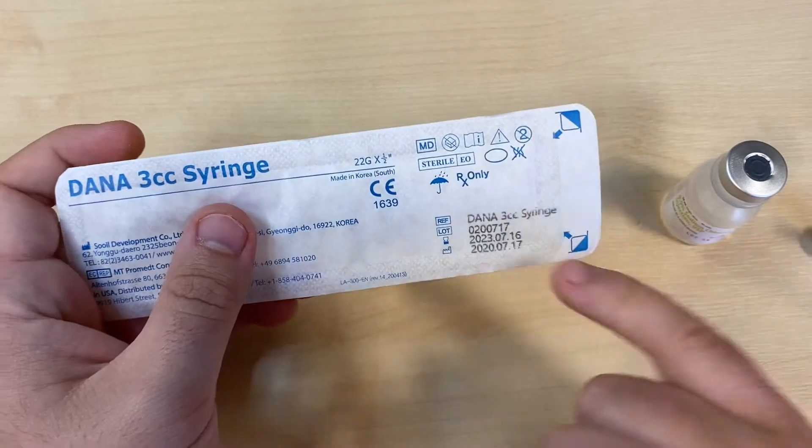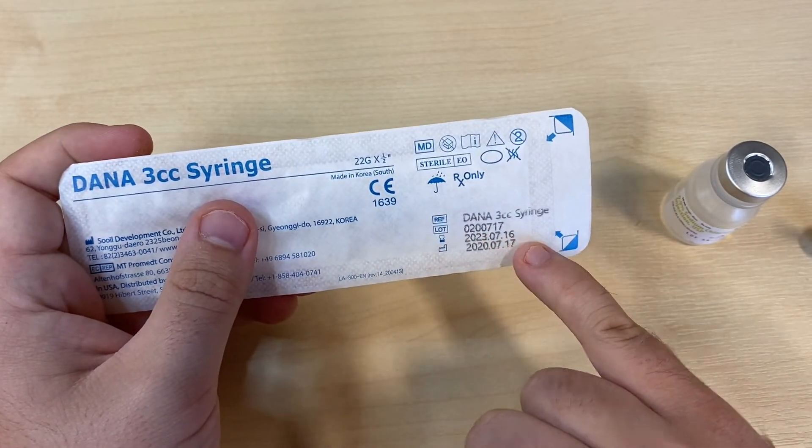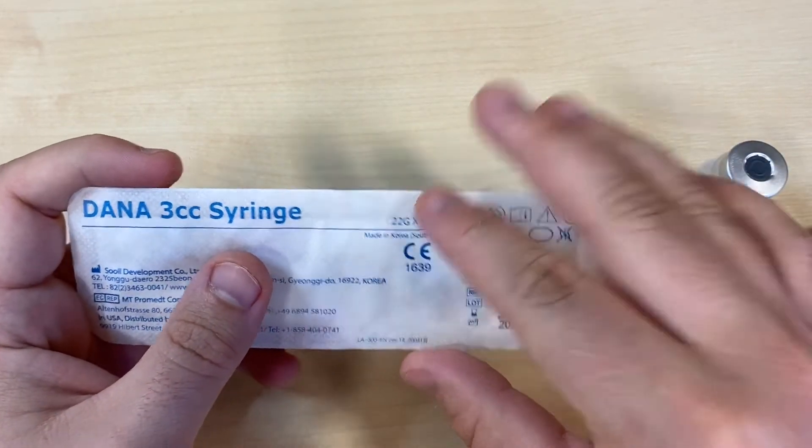With your syringe, double check the expiry date, making sure it's in date, before ensuring that it's sealed all the way around.